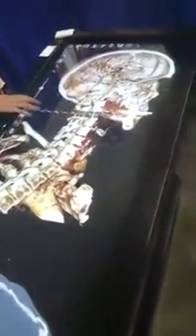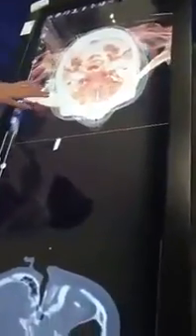You can go ahead and make a quick cut into the 3D model and see where the clips were placed as well. So it's kind of more intuitive when you see something in 3D, where the clips were placed rather than just focusing on a CT. And you can also add in some vasculature if needed. And you can also bring it back down. There's other ways where you can utilize this where I bring in transparent soft and hard tissue. And so in this case, you still see where the clips were placed.